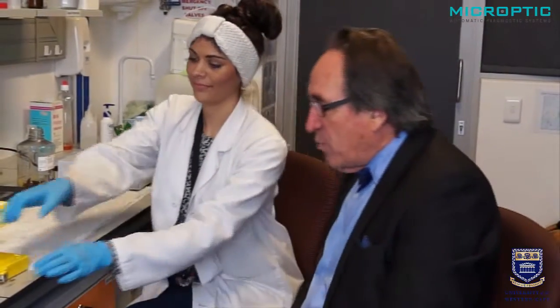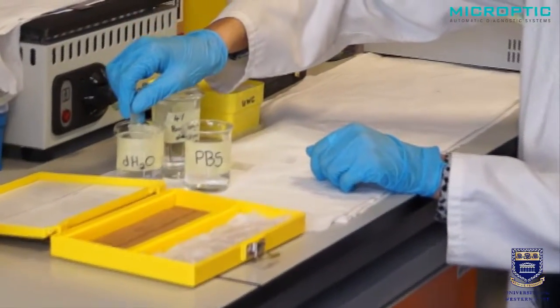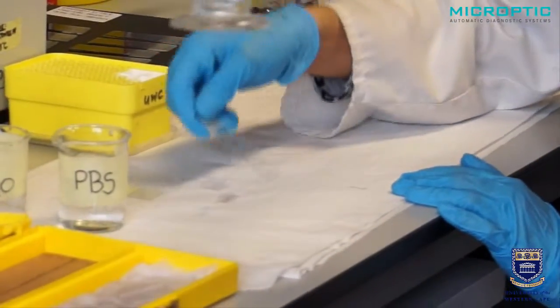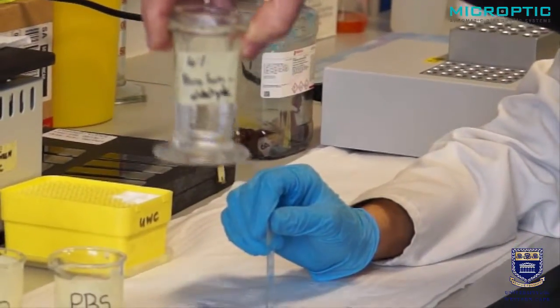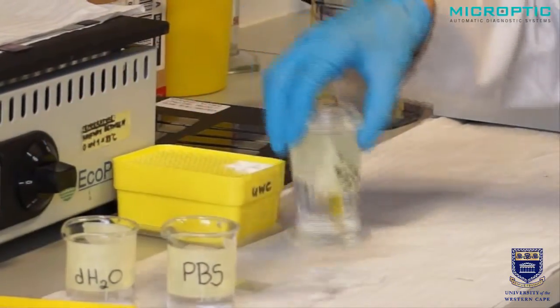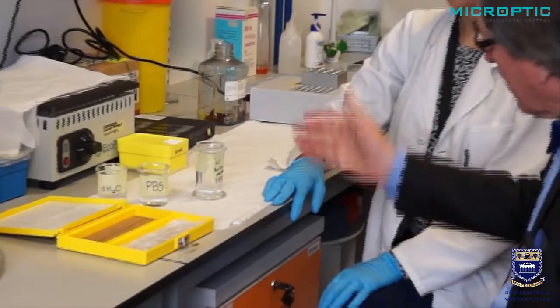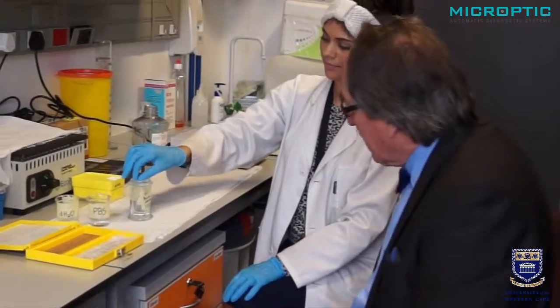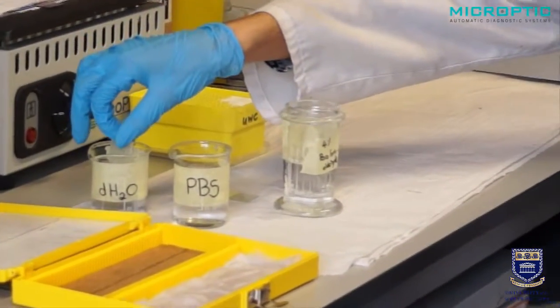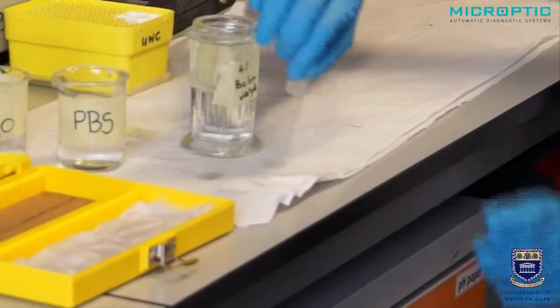The staining process has now been fully completed. We open the humidity box — the drop is still there. We put it in one immersion in distilled water. Optionally, we can fix it in 4% paraformaldehyde, which allows you to keep the slide slightly longer for about 48 hours and allows a bit more time to study the acrosome reaction. After about 15 minutes of fixation in paraformaldehyde, we dip it once in PBS and once in distilled water, and we now dry thoroughly. It needs to be totally dry before we mount it.